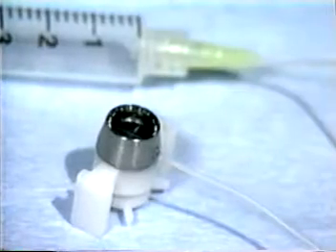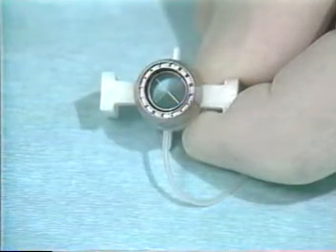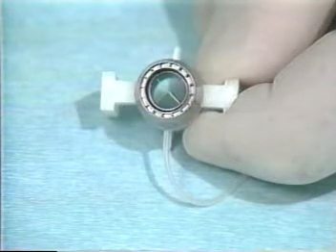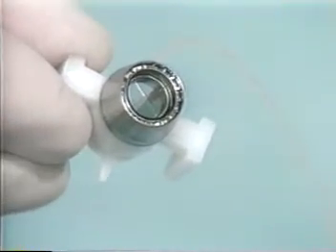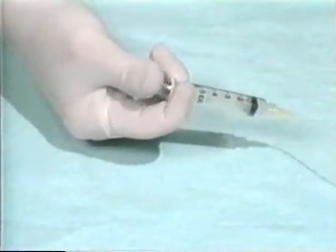The second part of the Barron system is the radial vacuum trephine, used to cut and mark the recipient cornea. It consists of a body and a blade assembly. The hollow walls of the body encase a vacuum chamber ending in 16 radial markers which will mark the cornea for suture placement. There are two plastic struts for holding and stabilizing the body. The vacuum chamber is connected by a small silicone tube to a syringe with a spring-loaded plunger.